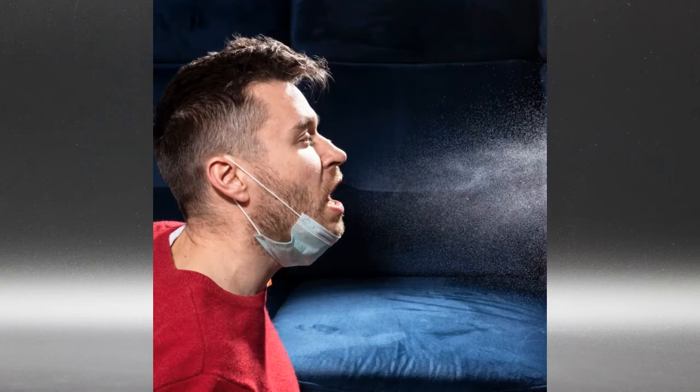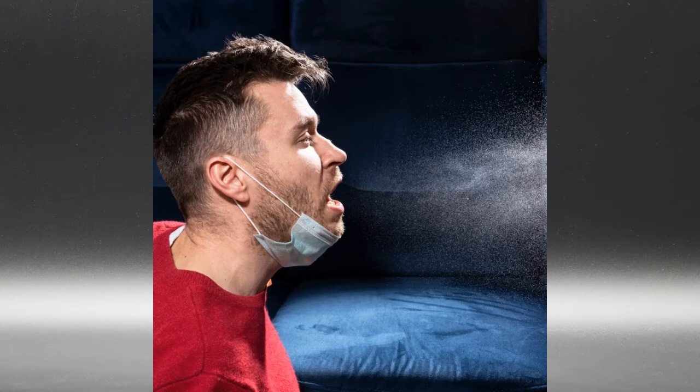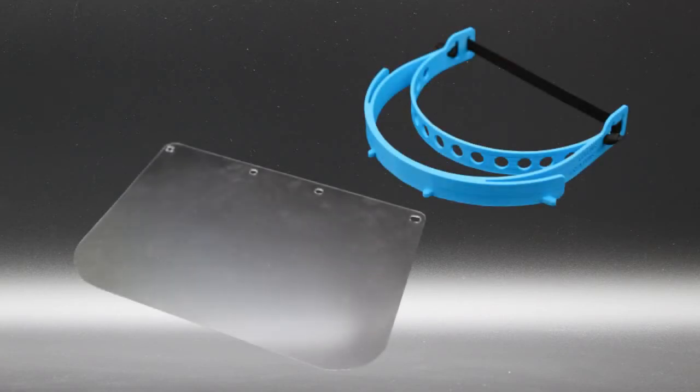Final step. General advice. After general use of protective visors or following an infectious incident where the visor has become contaminated we recommend the visor be replaced responsibly with a new visor to prevent cross-contamination. In the event where a visor is reused we recommend the forehead cushioning pad be removed and disposed of between washes. Disassembly of the protective visors should follow a reverse methodology of the preceding steps 1, 2 and 3.